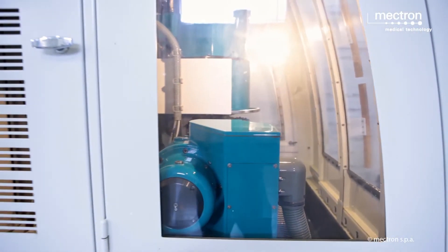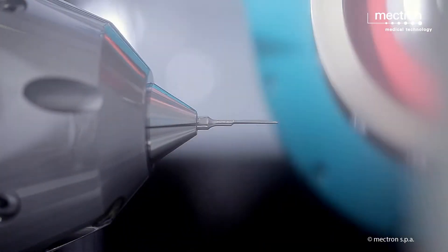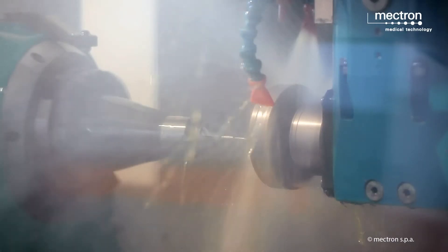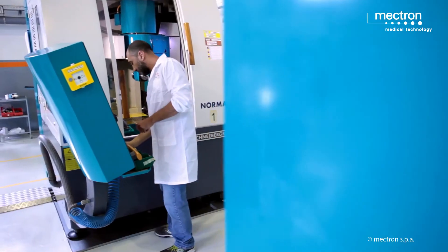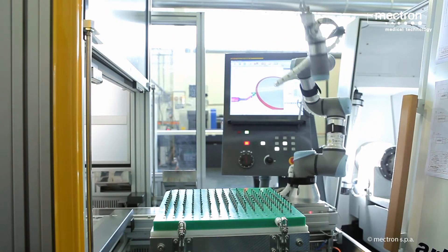Mectron inserts are designed for bone cutting or bone shaving, to drill holes, or for surface finishing. Automatic sharpening of the surfaces of the cutting, shaving, and drill inserts is done by using a proprietary CNC 5-axis sharpening machine.